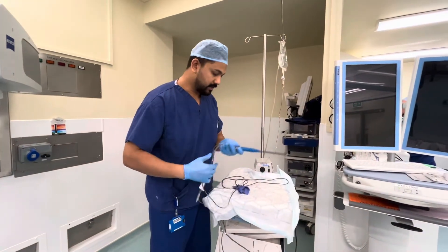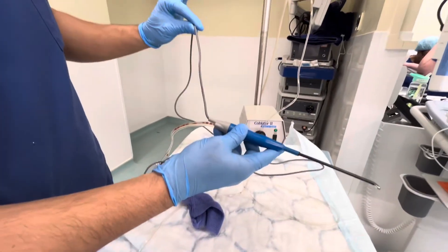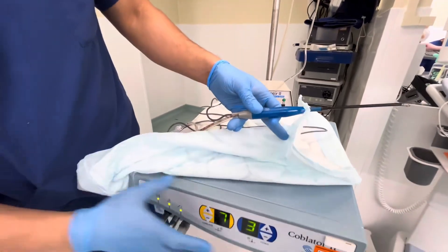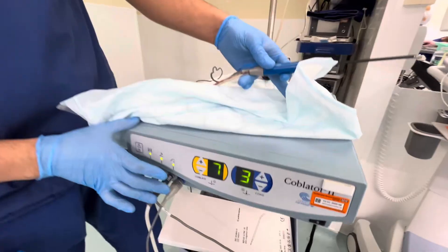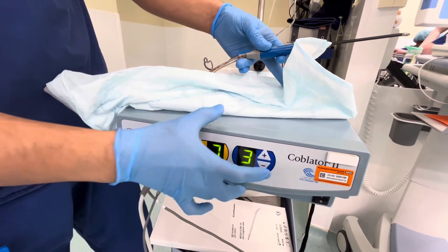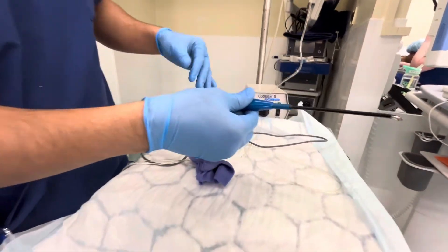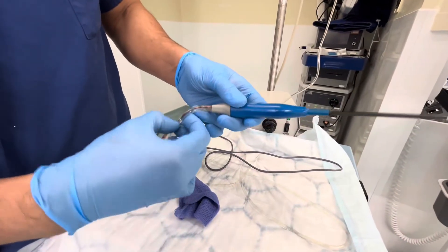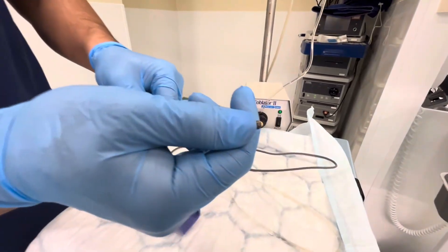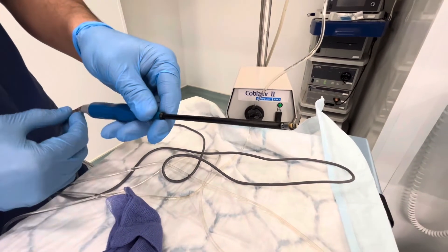You can see yellow and blue like a normal cautery — ablate and coagulate. Over here there are three wires. One is electricity; this is the system where the plasma current is generated. You can see there is some value which we can increase or decrease. Then this current goes in and there are two channels. This is a used one — that's where you can see the red. And these are the electrodes — ceramic electrodes — which produce the plasma current.